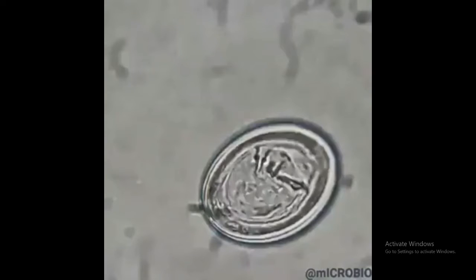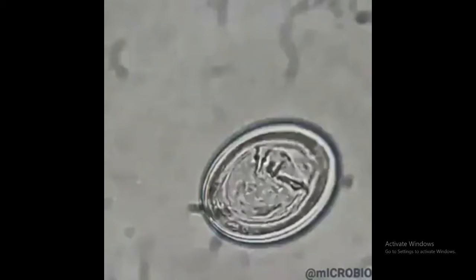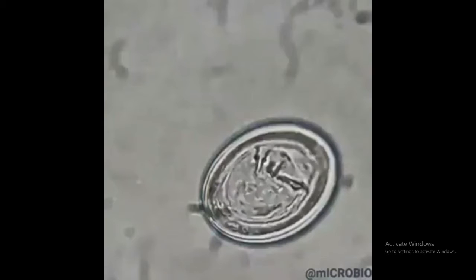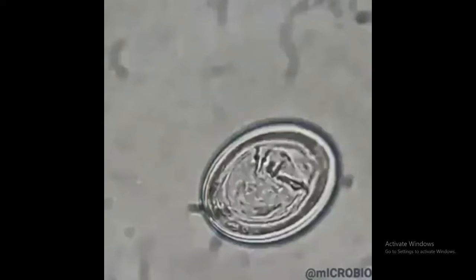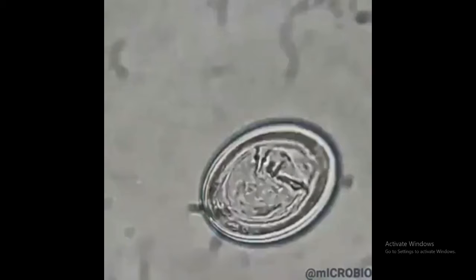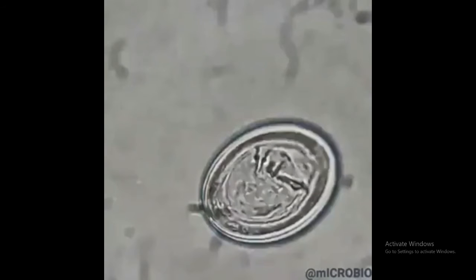Welcome, everyone. This is Dr. Maru Omar. We are still on our journey to explore the world of parasites under the microscope. And today's guest, we have Hymenolepis nana.